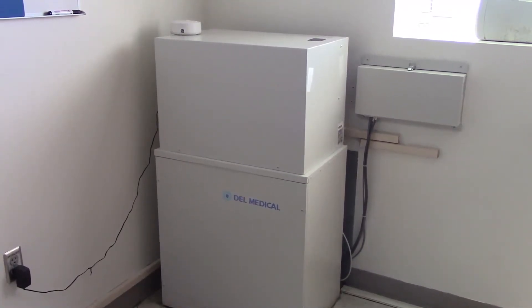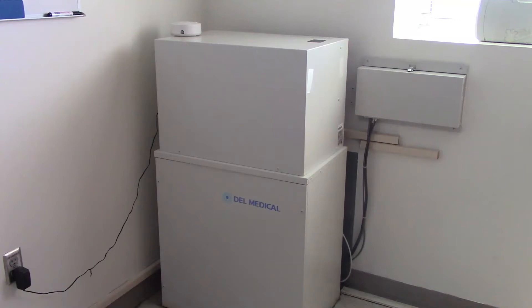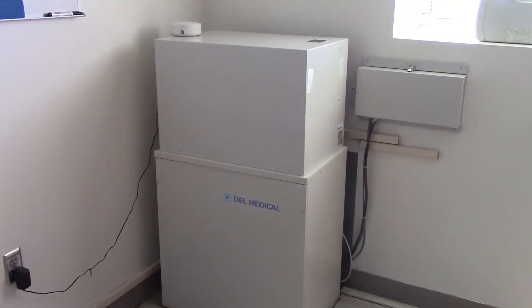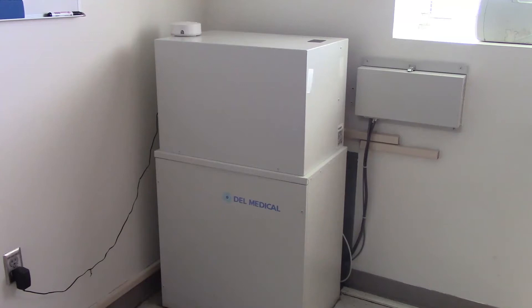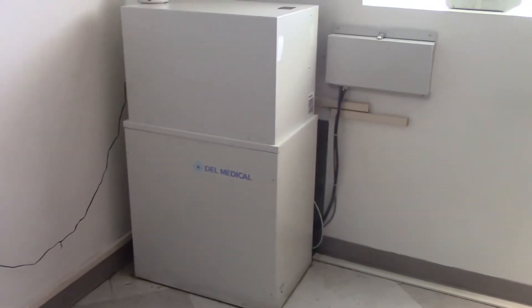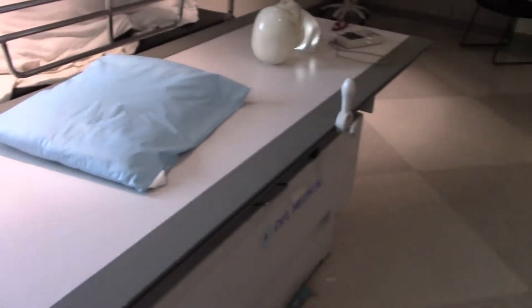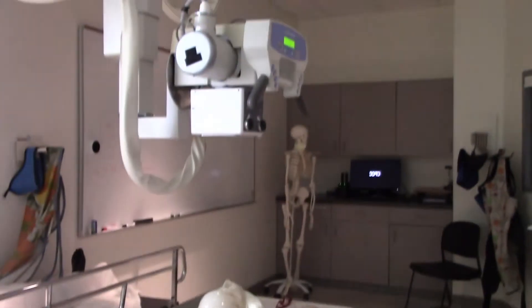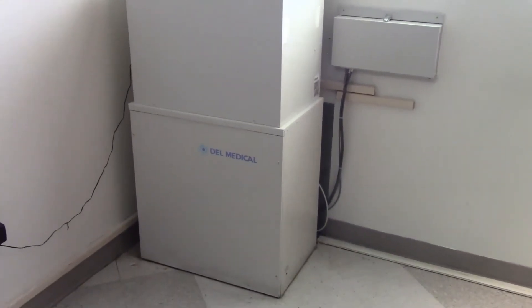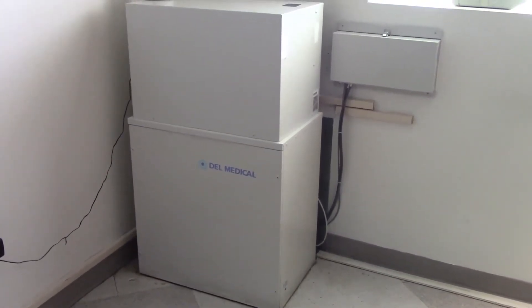This is the generator in my radiography laboratory. As you can see, it basically just looks like an apartment-sized refrigerator sitting in a corner of the X-ray room. It doesn't look like too much. Here's the X-ray table, and here's the X-ray tube. Everybody's got one of these boxes — we call it the X-ray generator.